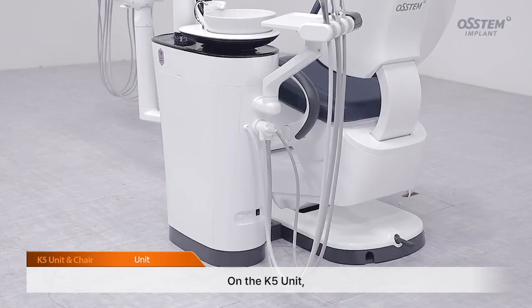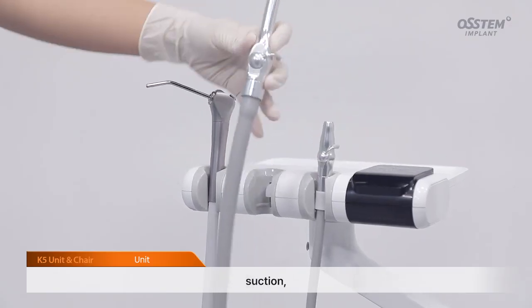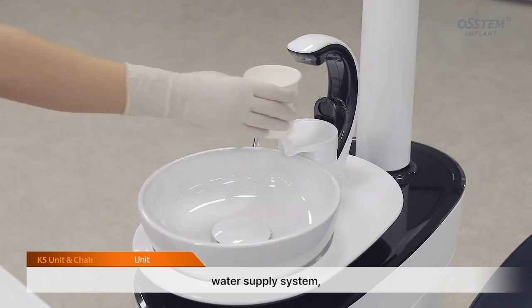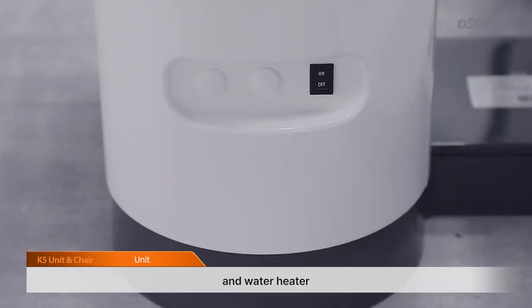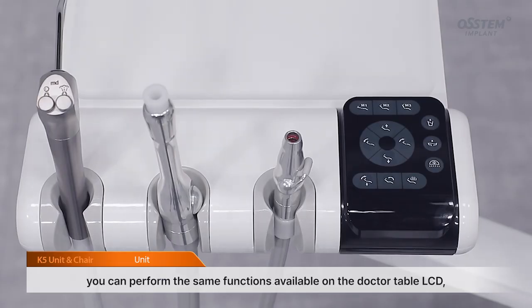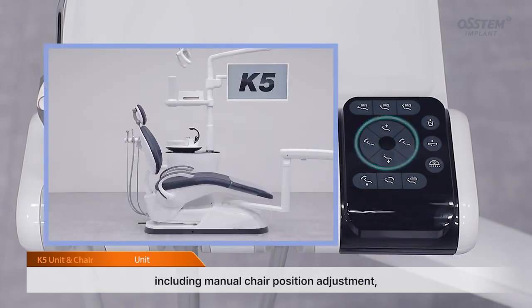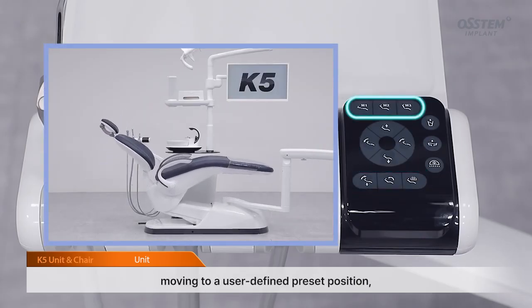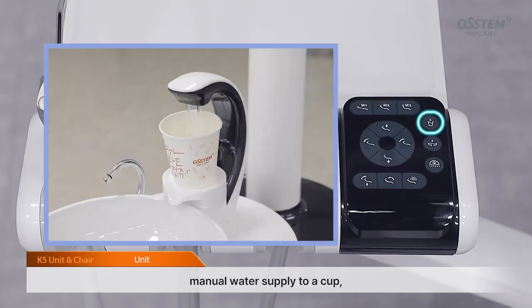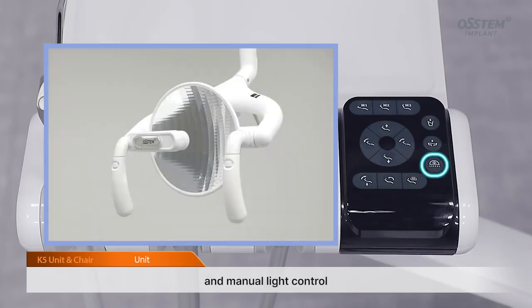Unit. On the K5 unit, you can use the assistant table panel, suction, water supply system, and water heater. On the assistant table panel, you can perform the same functions available on the doctor table LCD, including manual chair position adjustment, moving to a preset position, moving to a user-defined preset position, manual water supply to a cup, manual water supply to the spittoon, and manual light control.